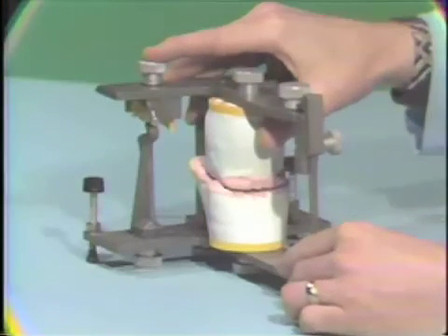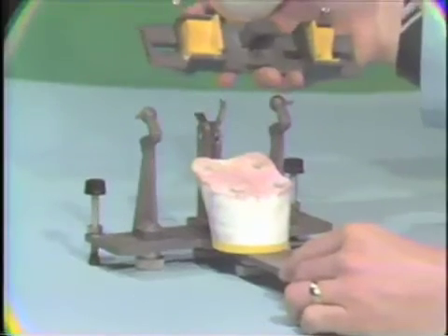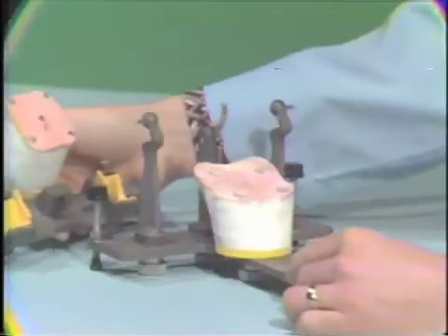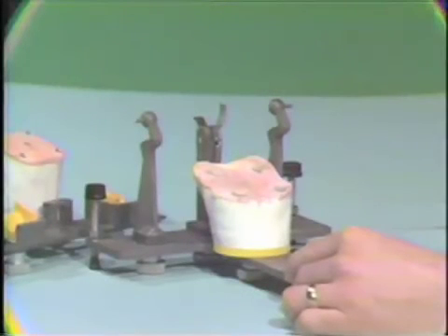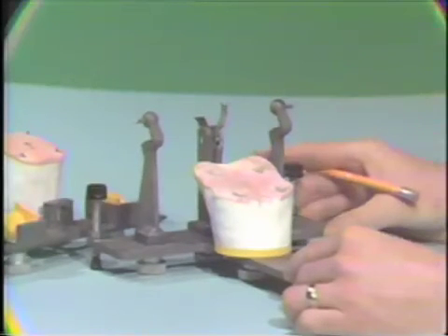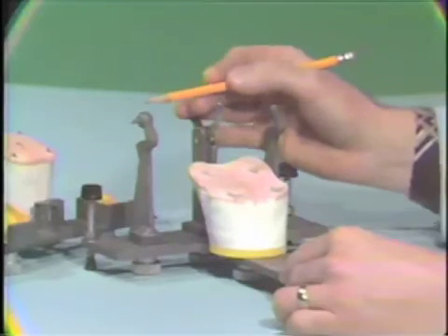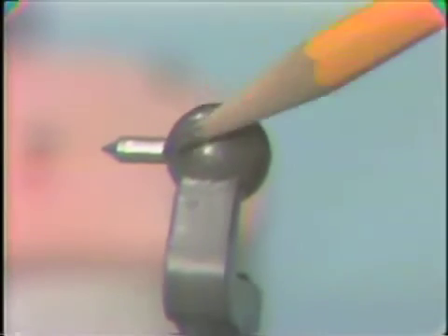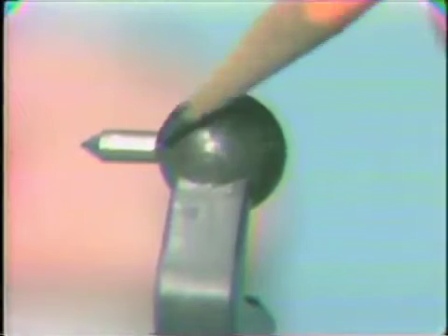The next step we'll do is we have to relieve our condylar blanks. In mounting, there was contact there for the purposes of mounting. Now we've got to go ahead and relieve this area to provide adequate thickness for the acrylic that we're going to insert. The first thing we want to do is mark the top part of our condyle on the lower member of the articulator quite thoroughly with pencil.